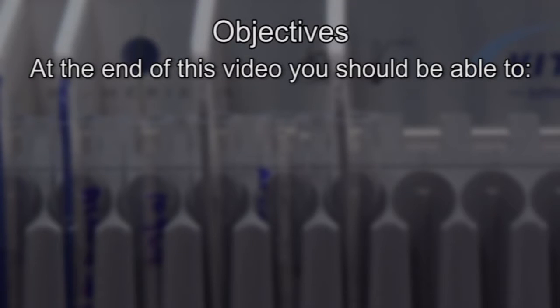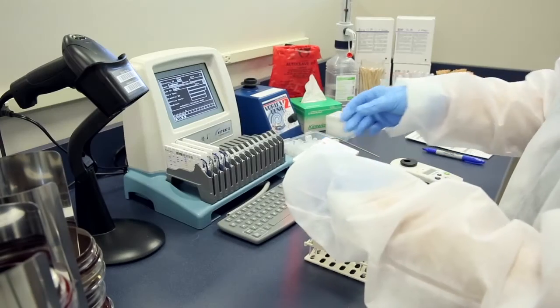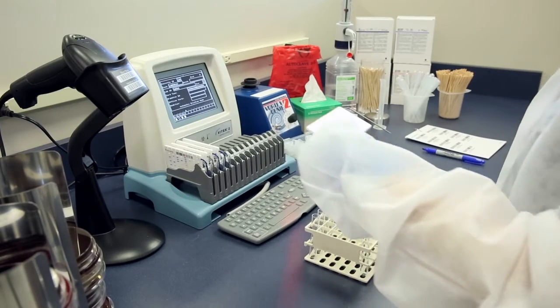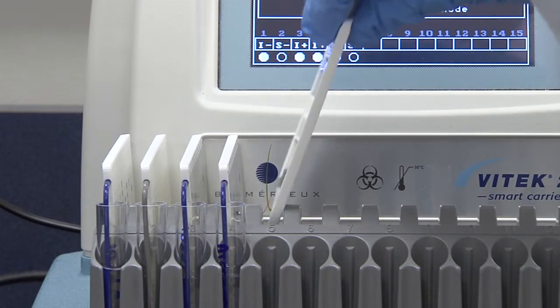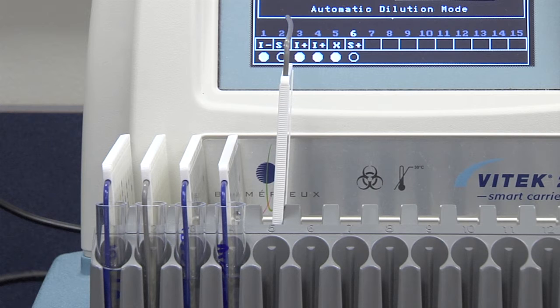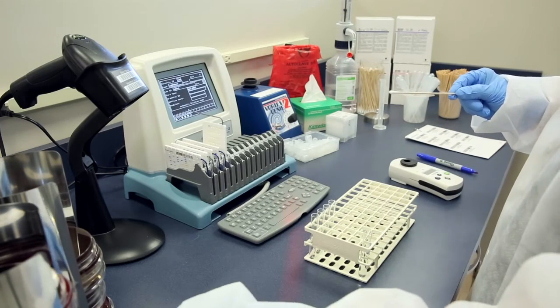This video demonstrates how to set up an AST card alone for both a test and a quality control isolate at the Smart Carrier Station. The next isolate requires only a gram-positive susceptibility card. In situations where identification of an organism has been determined using another method, an AST card can be run alone. The initial standardized inoculum must still be prepared.